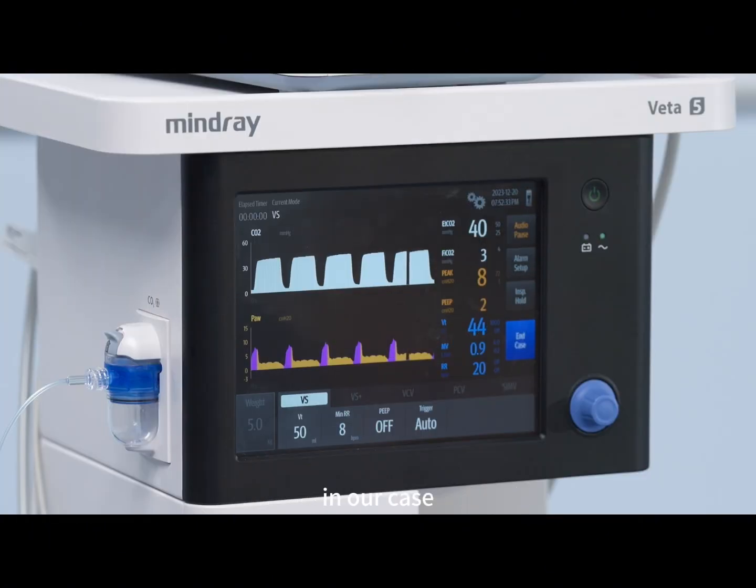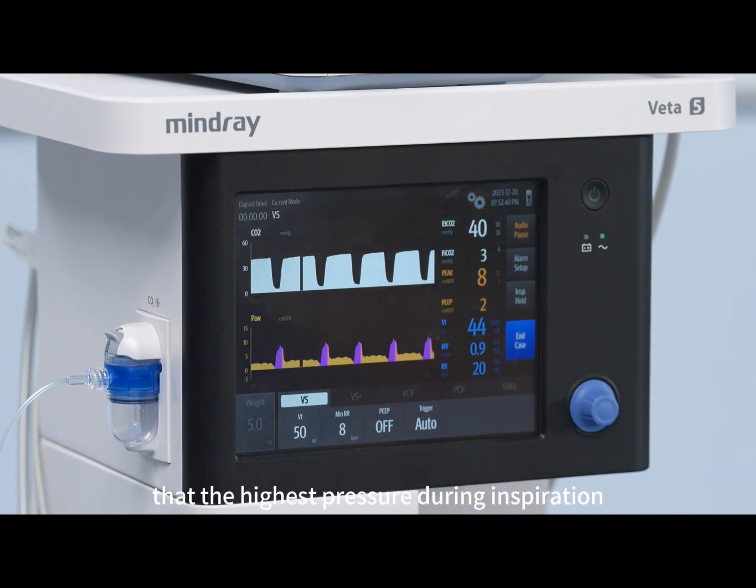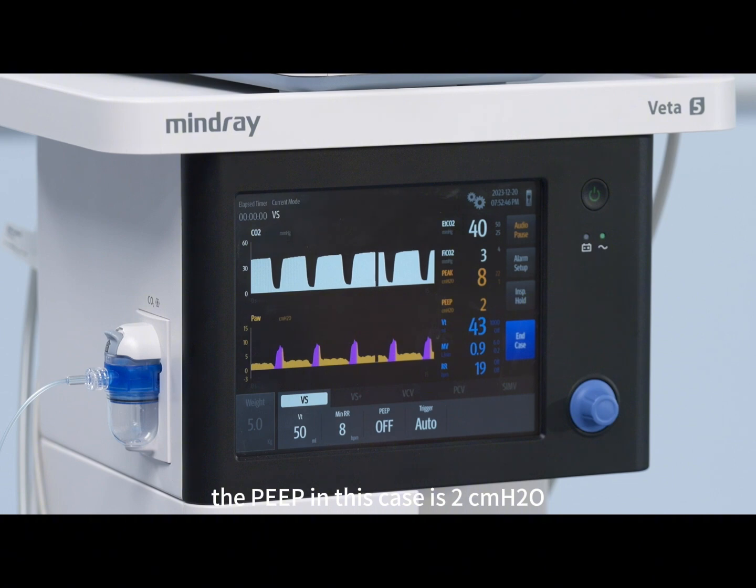In our case, the peak inspiratory pressure is 8 centimeters of water, which means that the highest pressure during inspiration is 8 centimeters of water. The PEEP in this case is 2 centimeters of water.